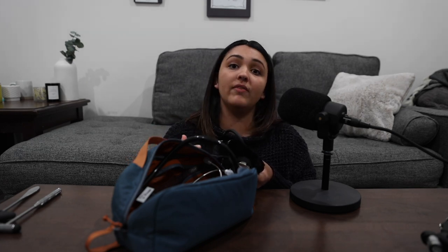Then I have my blood pressure cuff. This is also one that my school gave me — it's the MDF instruments. I like it, however I do wish it had a larger range for the arm. So if you're looking to get a blood pressure cuff on your own and your school doesn't provide one, I would suggest getting one that has a higher range than 25 to 40 centimeters. Some patients might have larger arm sizes, and you want to be inclusive — and it saves an awkward moment when the cuff doesn't fit.